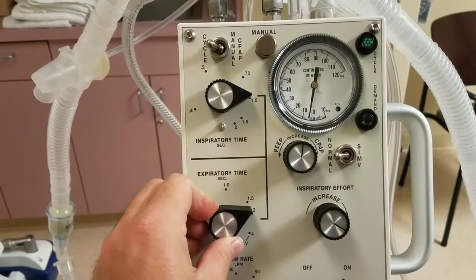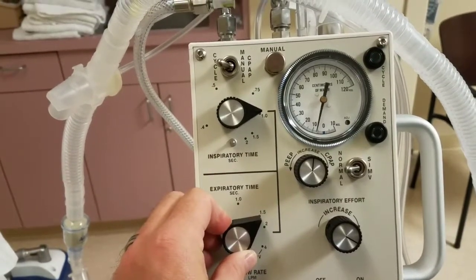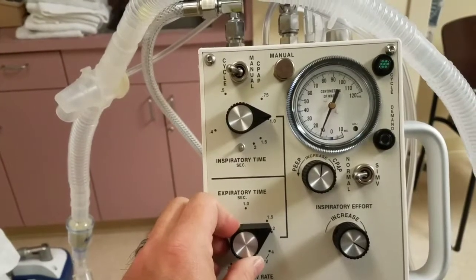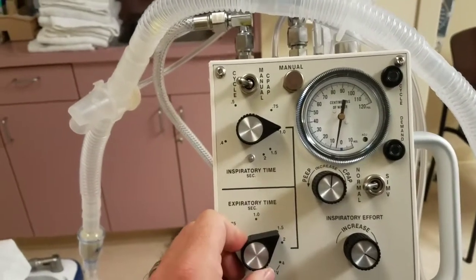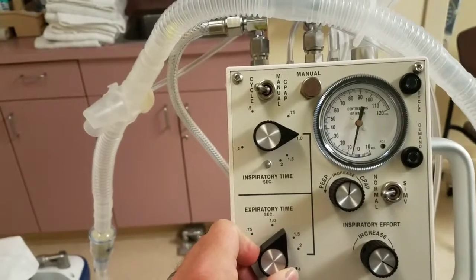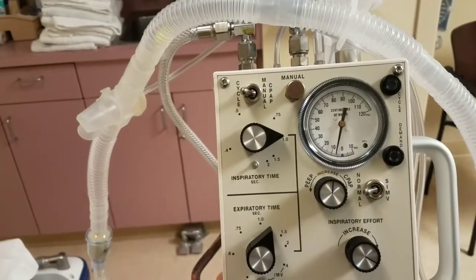So by a little bit you can do 1 to 0.5, but there is availability to do something between that. Okay, so if I decrease E time, I'm gonna increase respiratory rate. If I even more decrease E time, the respiratory rate is gonna go up and up. You can see it. It goes faster now, right?